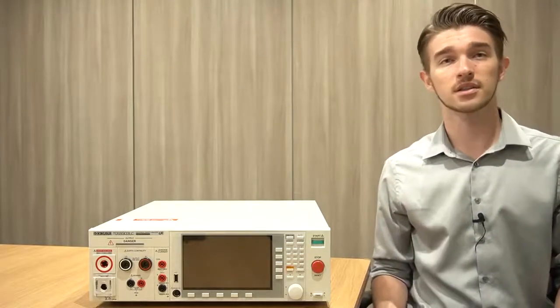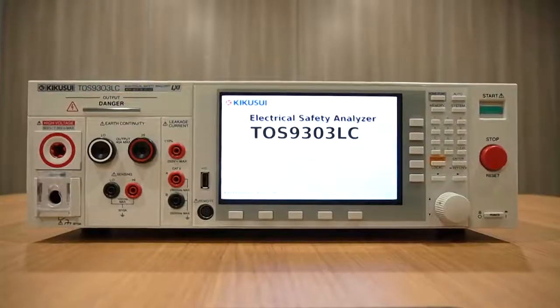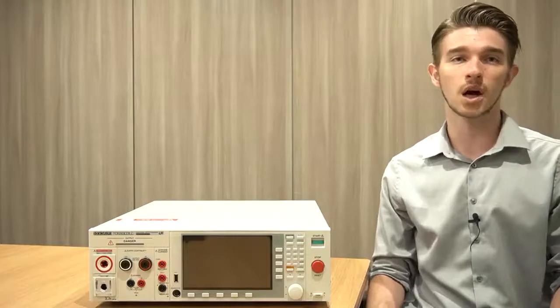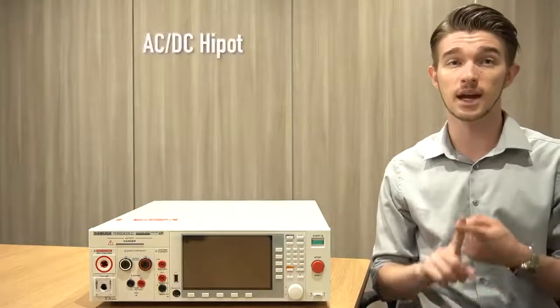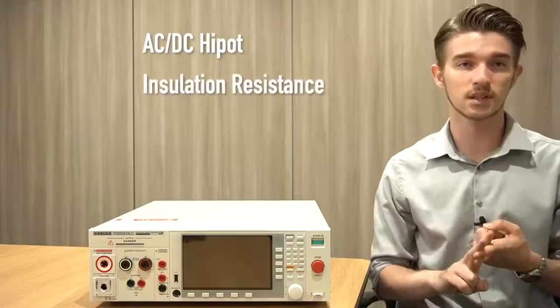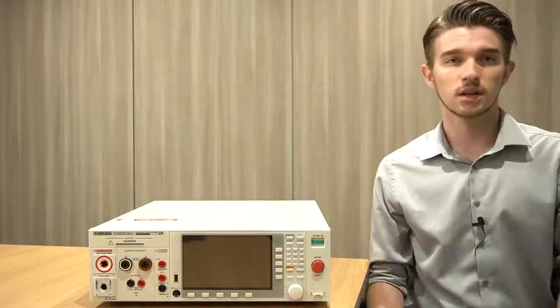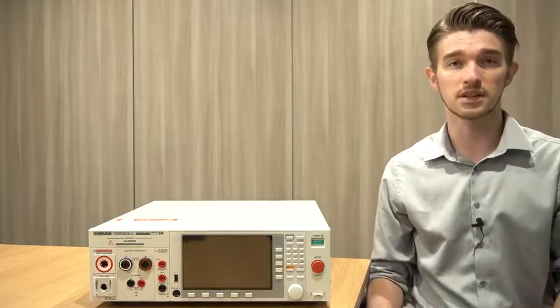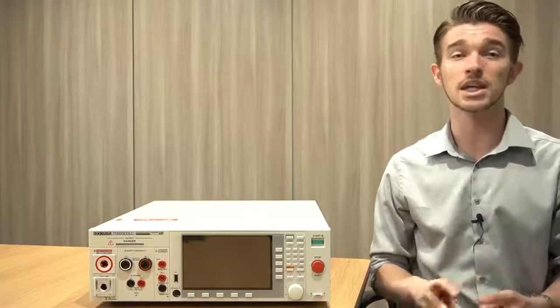Luckily, products such as the TOS9300 Safety Analyzer series by Kikusui Electronics offer an all-in-one solution capable of not only patient leakage current tests, but come equipped with AC and DC high pot, insulation resistance, and ground bond testing capabilities in a single unit. Conducting a patient leakage current test with the TOS9300 is as simple as setting test conditions, starting the test, and making judgments.